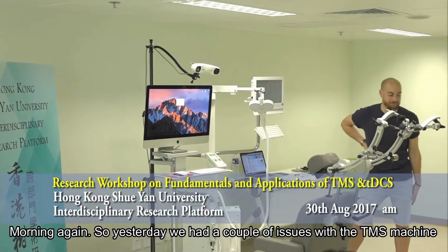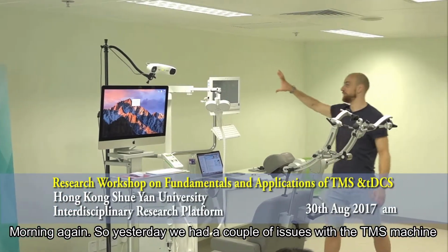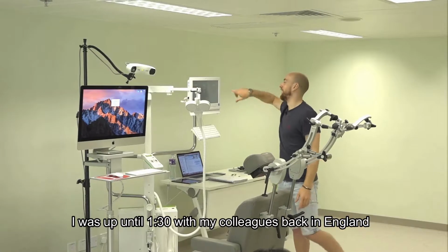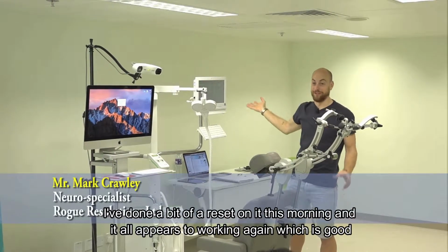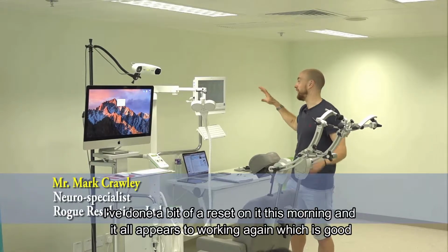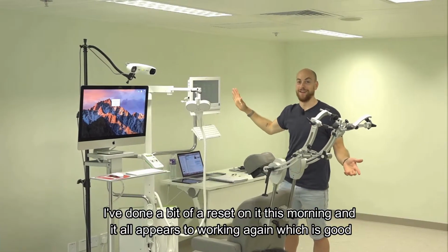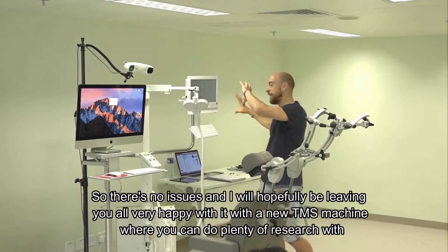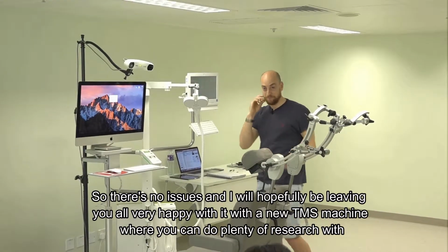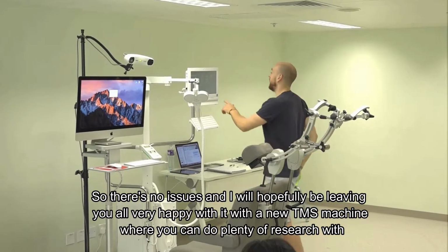Morning again. So yesterday we had a couple of issues with the TMS machine. I was up until 1:30 with my colleagues back in England. We've done a bit of a reset on it this morning, and it all appears to be working again, which is good. So there's no issues, and I will hopefully be leaving you all very happy with a new TMS machine where you can do plenty of research.